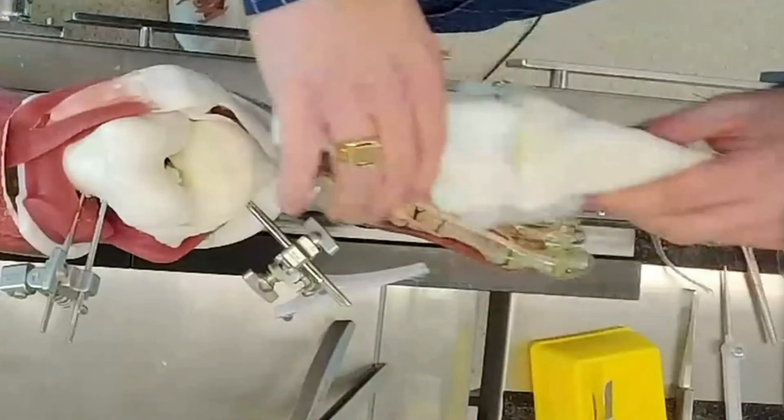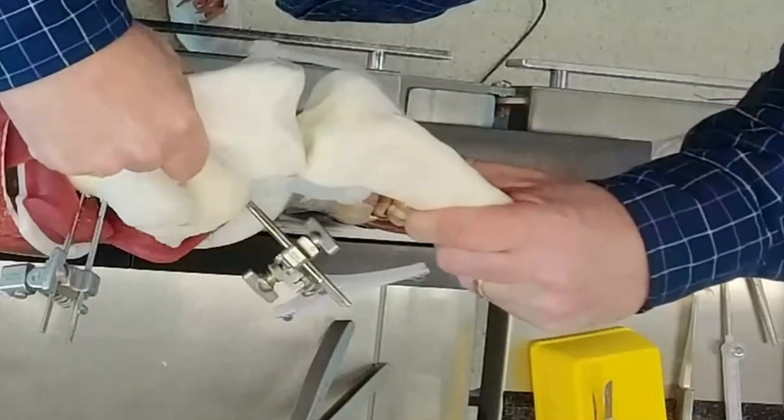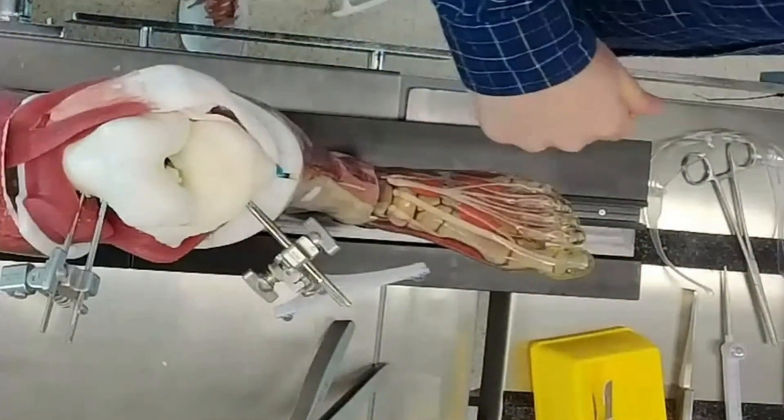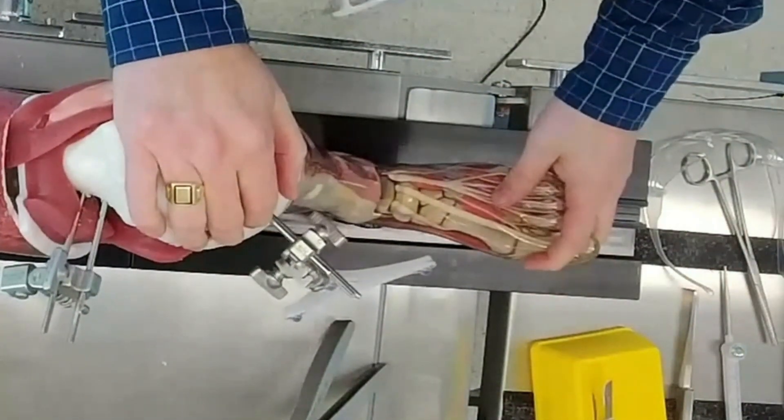This is very different to what it would be like with our conventional bones, where if you apply a varus or valgus stress those numbers just elongate. When we do some sensor tensor work in the next couple of minutes, you'll see the big differences there.